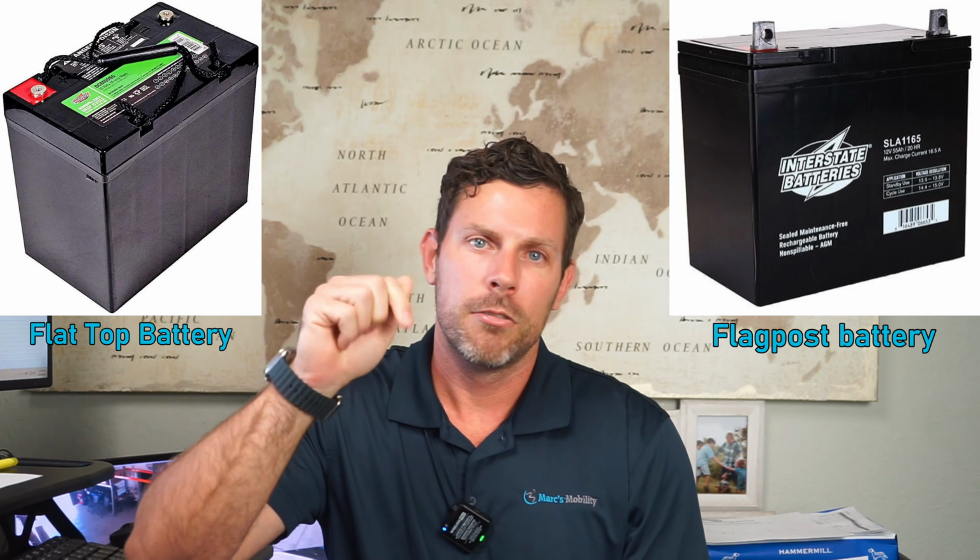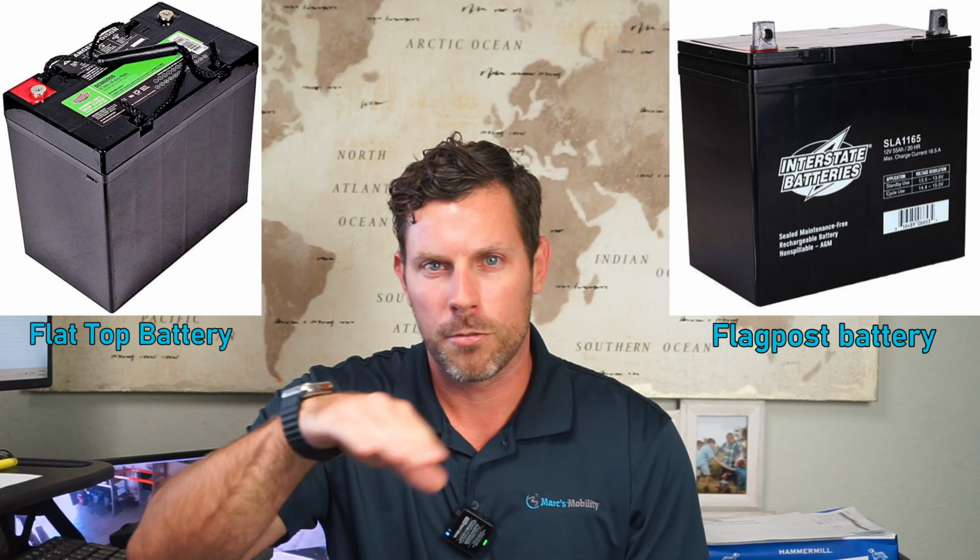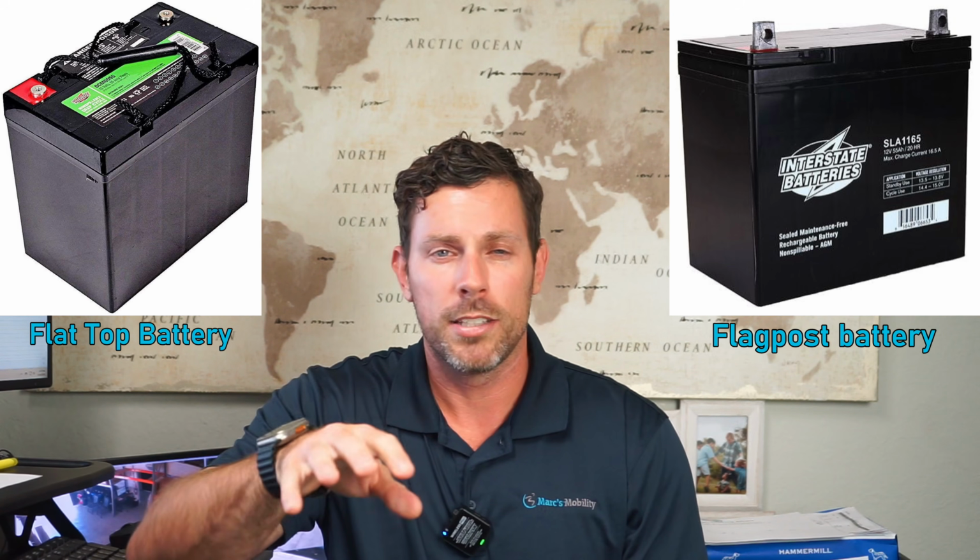Now we're going to go over the battery sizes on the mid-wheel driven units. So the Edge 2.0, Edge 3, and the Stretto all take 55 amp batteries, which is called a 22NF. That's the code for the batteries. But the only difference is the Stretto has to have flat post batteries, which means the screws go down into the battery instead of the lead going through the terminal. So once again, if you are looking for batteries, we will have links below at the bottom. The Stretto is 55 amp batteries, just like the Edge 2.0 and Edge 3, but it has to have a recessed terminal. So you'll see it called flat top or recessed post. Either one of those terms is what is needed for the Stretto.